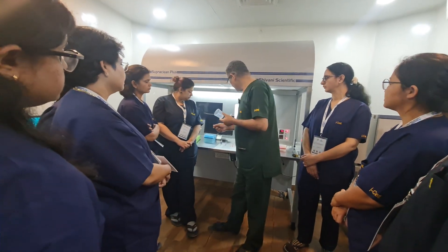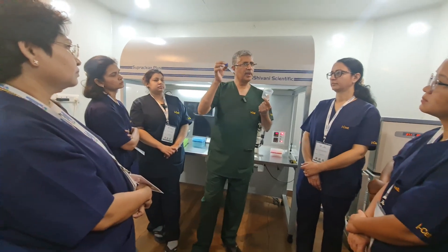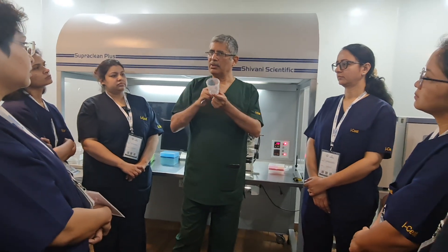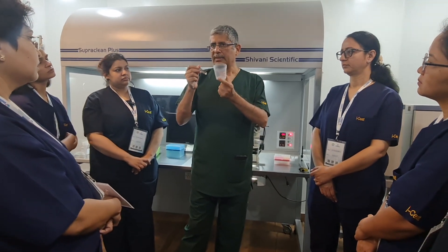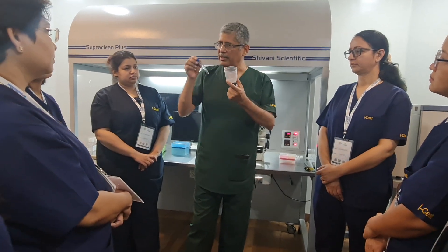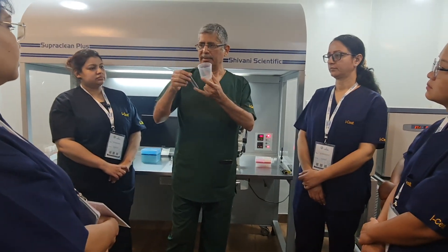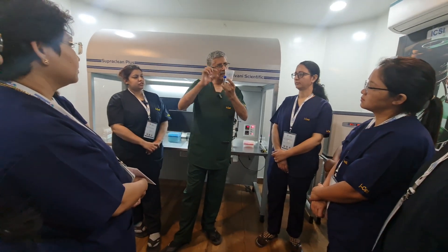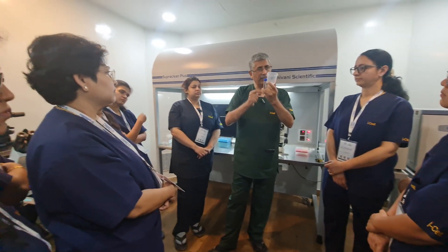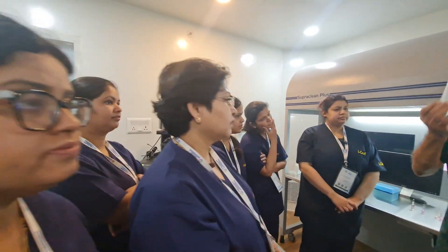To the semen sample, we take it in a centrifuge tube and we wash it — this is called the washing method. We spin it using centrifugation and wash for around 12 to 15 minutes. We get a pellet, then we discard the supernatant.